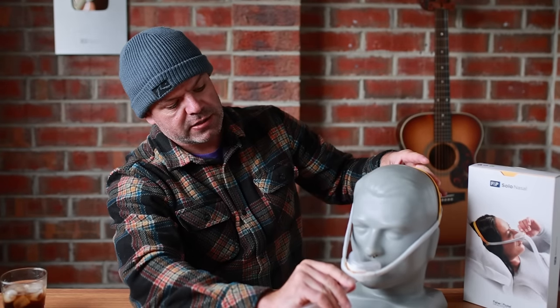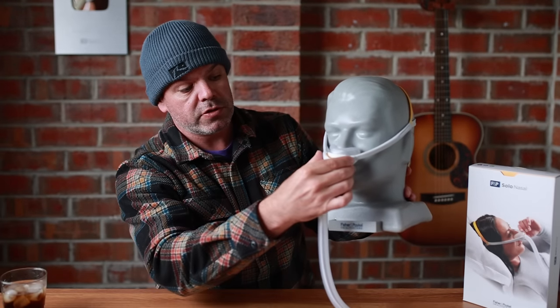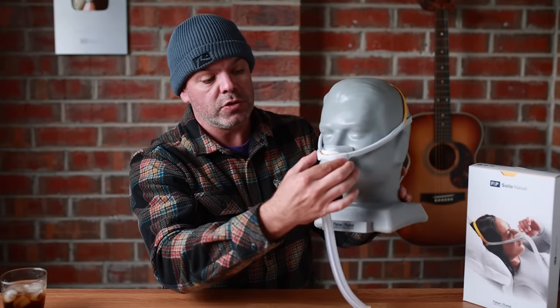What's ingenious is if I pull it over the mannequin and pull it down, you can see as I release the tension it wants to just pull back into place. That's just elastic. However, if I push here, the actual strap locks into place — it gets tighter. If I just tweak that part there, that part locks in. So as you're making minor adjustments with this section to the nose, there's no clips, velcro, buckles. It is just locking into place, getting tighter as you do it. And that's totally new.